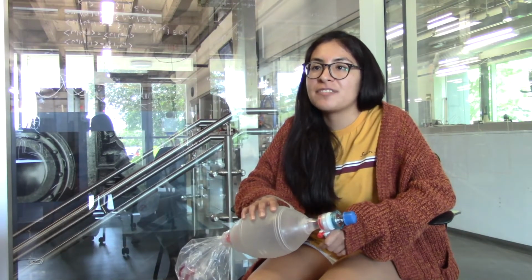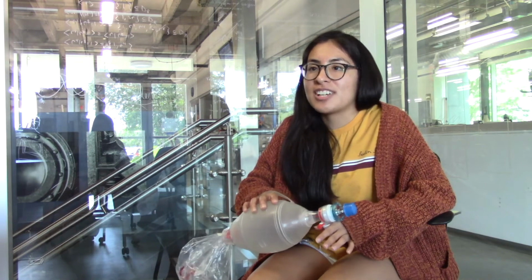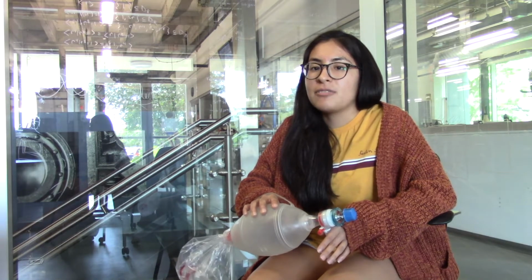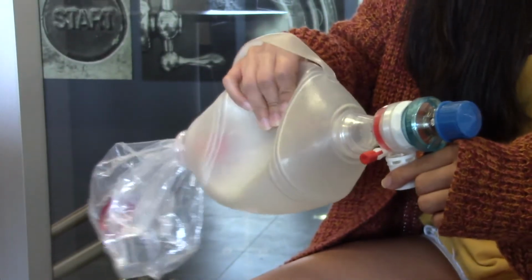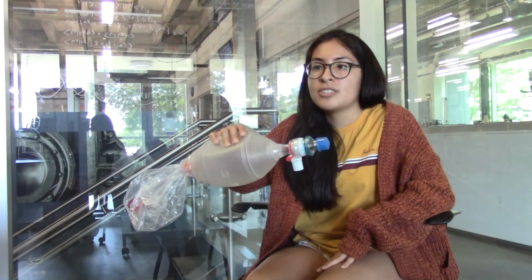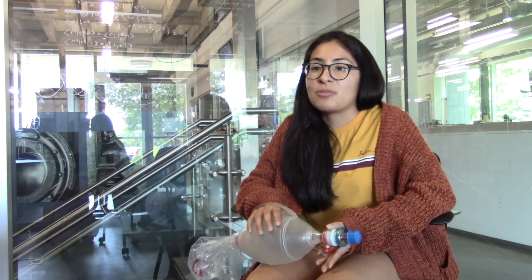Time, our team took a breather, and we were tasked with creating a low-cost, long-term ventilation device for low-resource settings. In the US, there are ventilators that treat respiratory distress. However, in low-resource settings, these high-end ventilators are not accessible. Therefore, medical personnel are forced to use this device called the bag valve mask to manually ventilate a patient. However, due to the lack of medical personnel, family members end up having to ventilate loved ones for up to hours on end. This is very inaccurate and tiring. Therefore, there is a need for an automated solution, and that is where we come in.